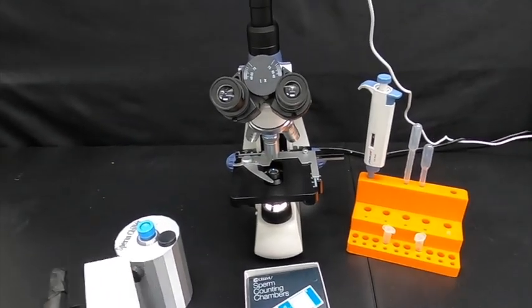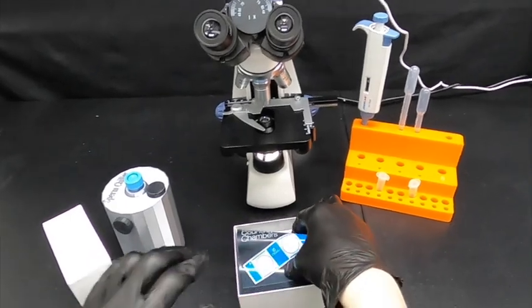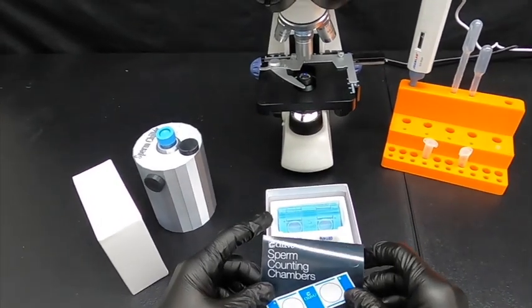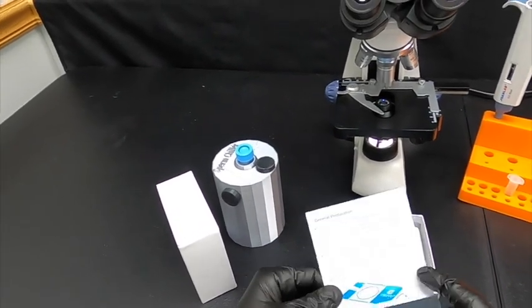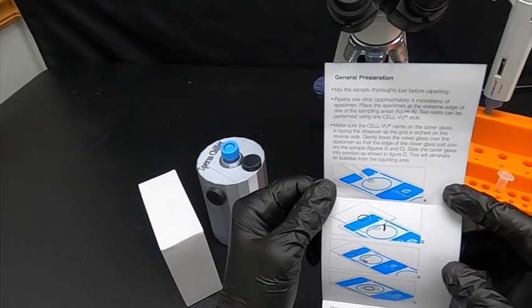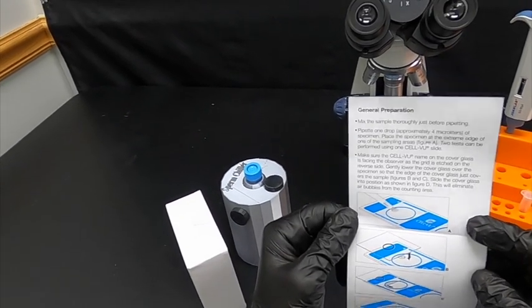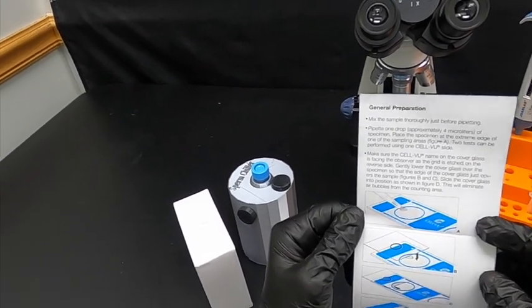First, we'll open up the package and take a look at the instructions. These are rather brief and simple. We'll go over a couple of steps to ensure you see the proper use so you get the best results.